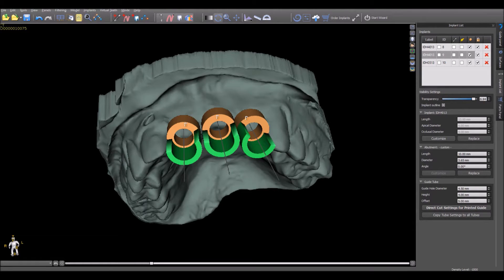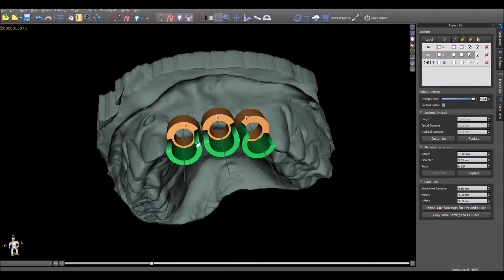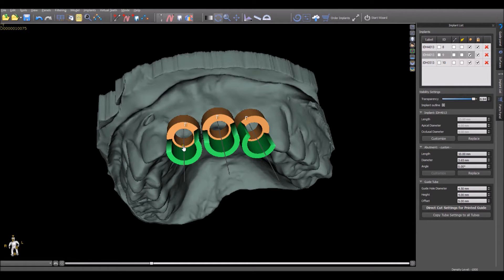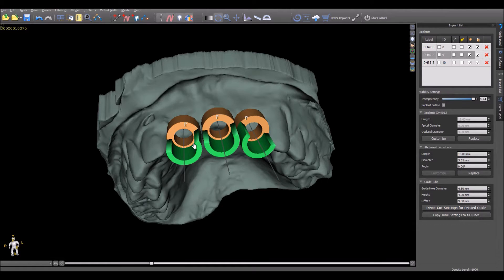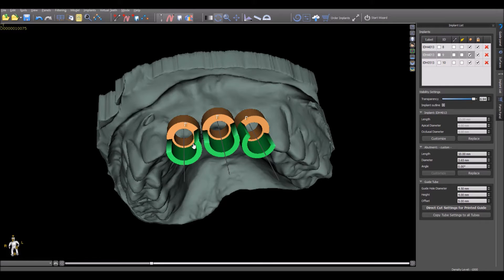The Blue Sky Plan software now includes built-in drill stops. The built-in drill stops, as you can see on the screen in green, is an extension of the software guide tubes that appear in orange. The software guide tubes represent the future hole in a surgical guide and the metal cylinder will be placed inside the printed hole. The green printed drill stops extend upwards from the guide to stop the handpiece at the correct height for the implant to be placed at the correct depth.